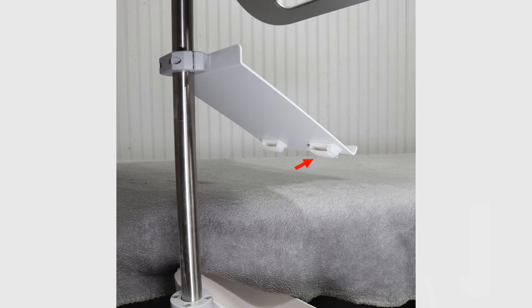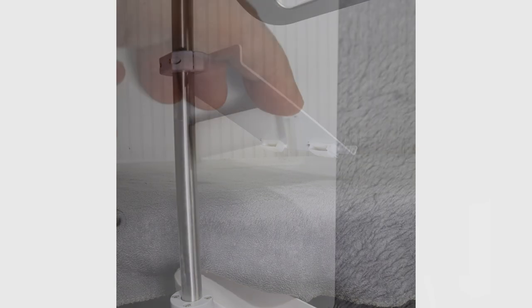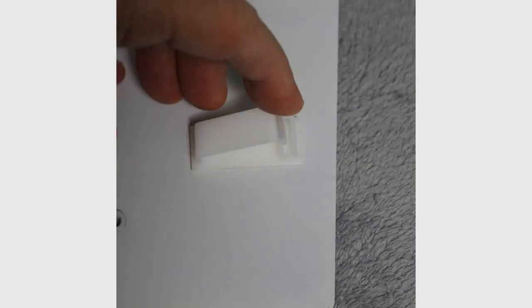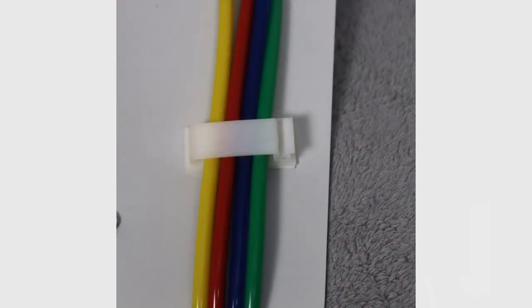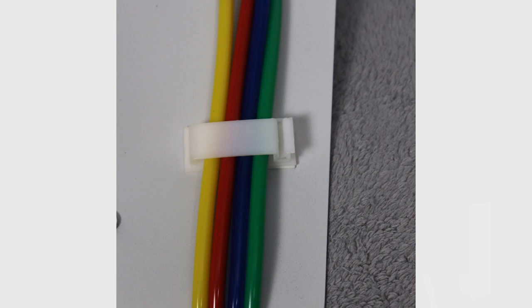On the underside of the cufflink tray, there are plastic retention straps. Open the straps and feed the respective hoses, patient left and patient right, through them and snap shut.